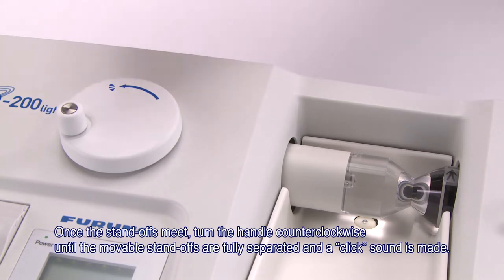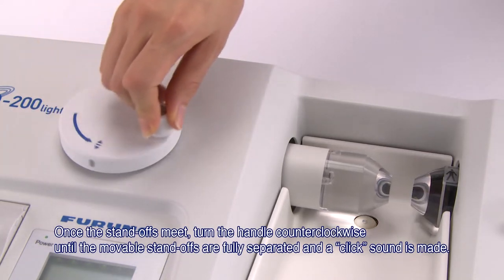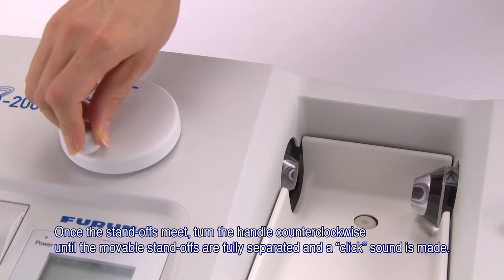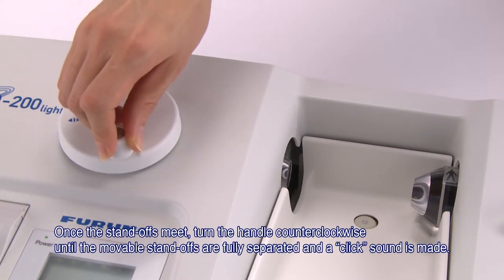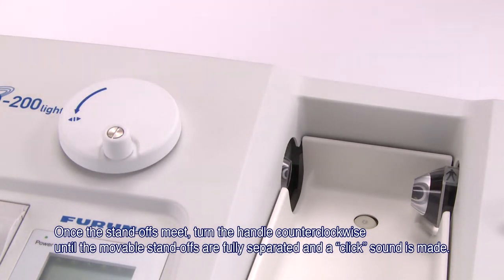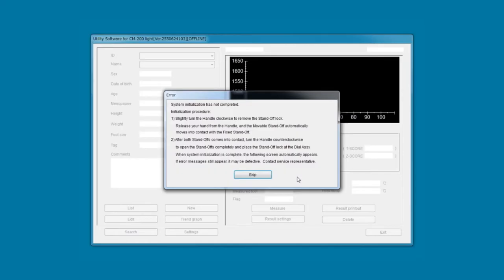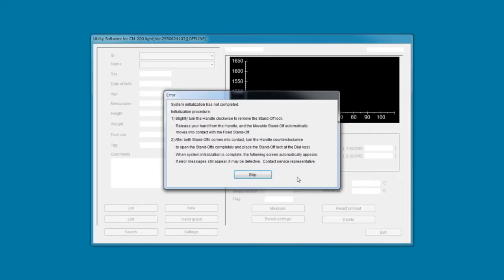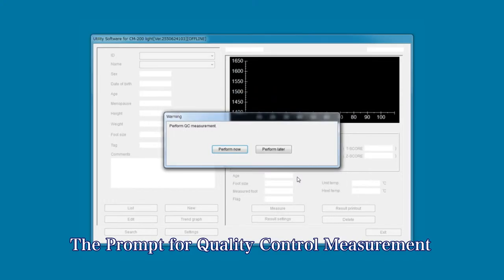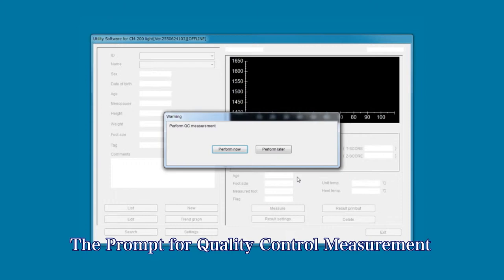Once the standoffs meet, turn the handle counterclockwise until the movable standoffs are fully separated and a click sound is made. Once the initialization is completed, the prompt for quality control is displayed on the screen.